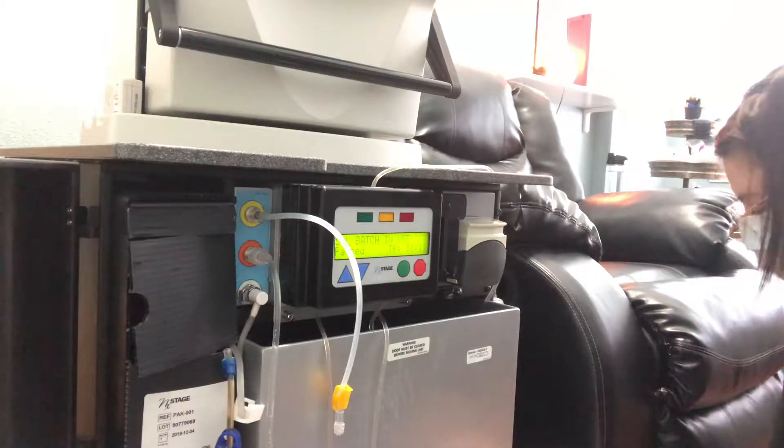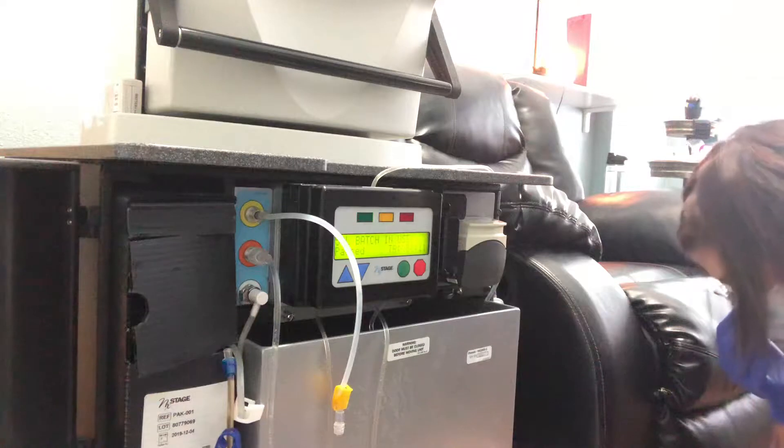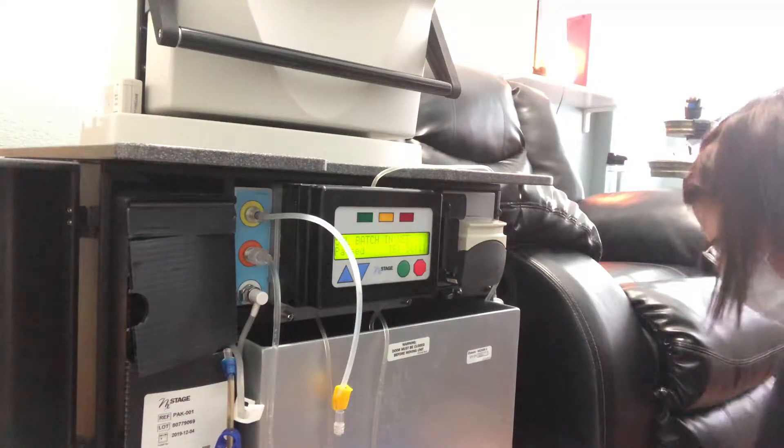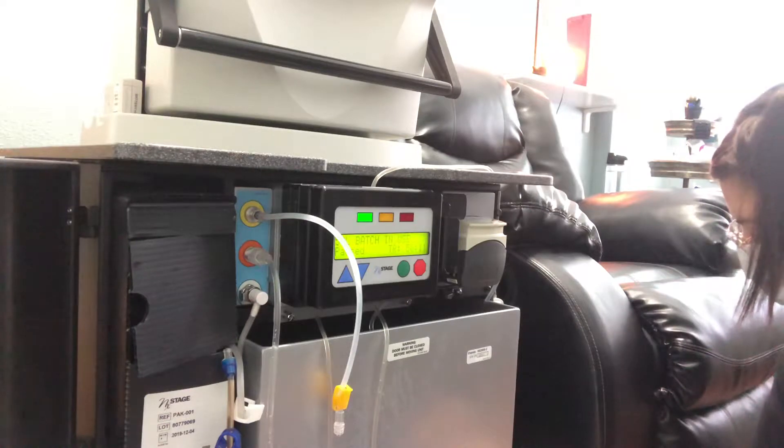Do not disconnect the fluid lines from the cycler yet. You're going to follow strict aseptic technique to prevent contamination of the sample.